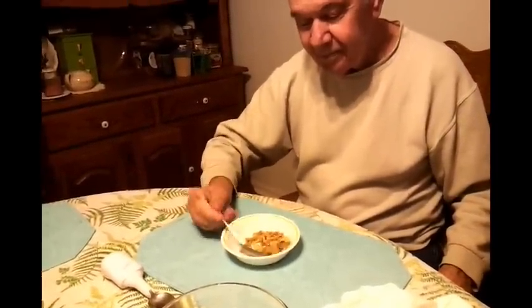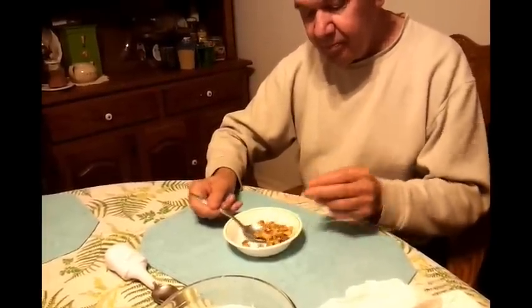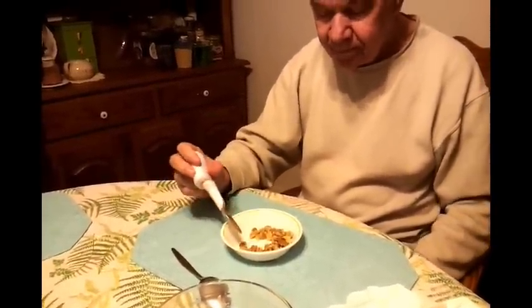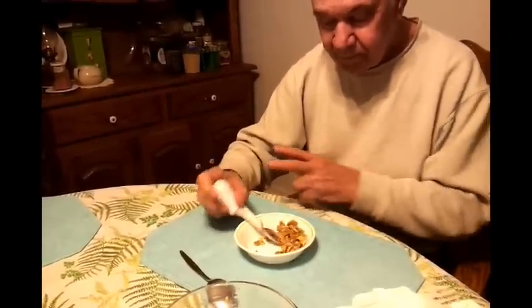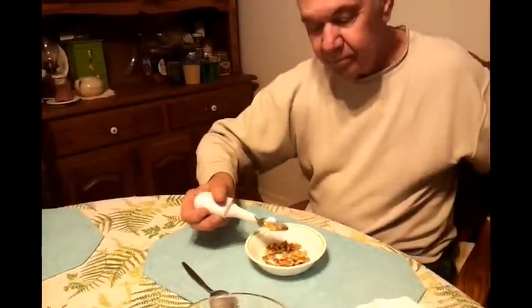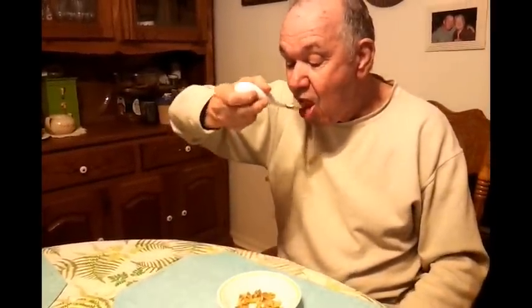And that's not an exaggeration — that's what he goes through to get food to his mouth. Alright, so that's a big difference. Try it again with that one. Alright, let it go. No hands. Well, that is proof. Alright. Eat it. Now that's way better than 20%. Yeah, that's it — that's dramatic. That is what's dramatic. You're right.